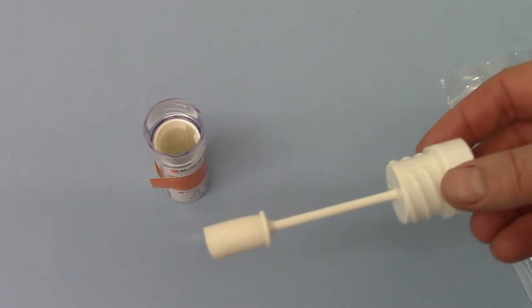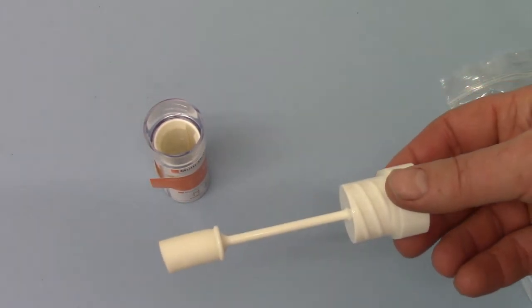Okay, now this swab has been completely saturated in my saliva. It only took about 30 seconds.